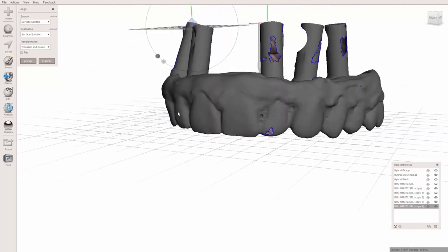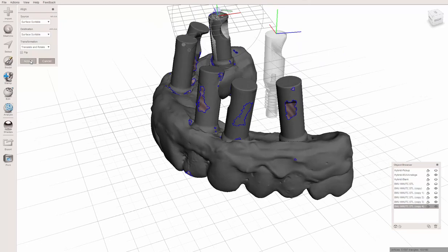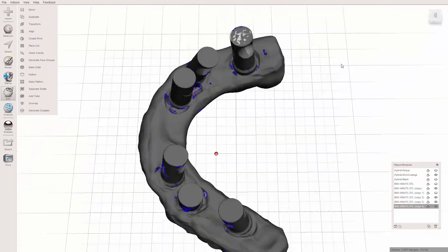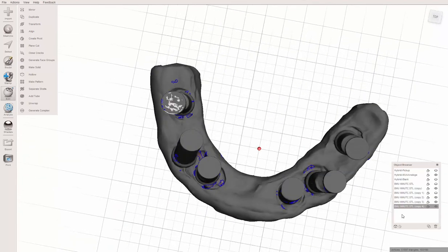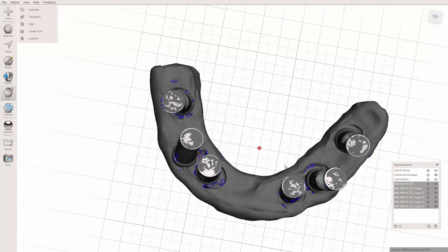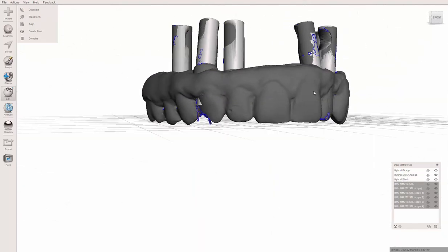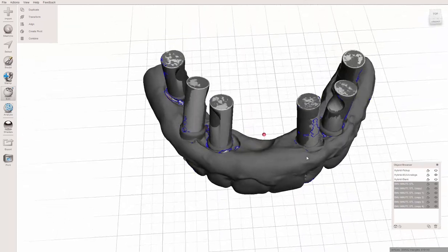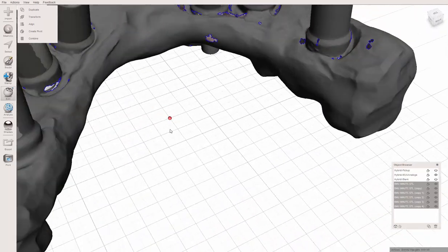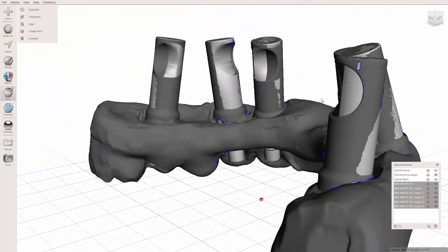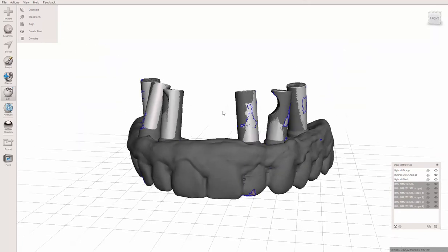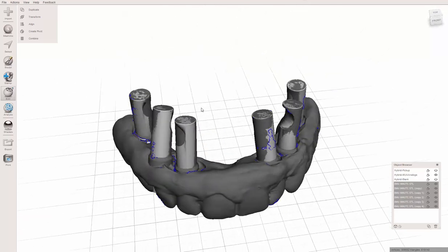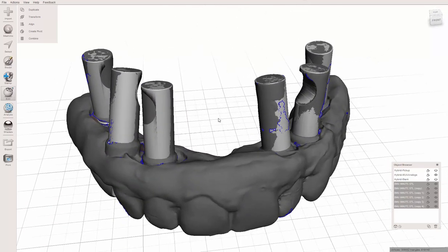One thing to keep in mind is the rotation is not lined up. That might seem weird if you don't think about it, the fact that these are multi-unit abutments. Technically the rotation is irrelevant, we're not worried about that. These aren't perfect alignments, they're pretty close but not perfect. I wouldn't trust this quite yet for a millable situation or even printing. This is going to require some wiggle room to get this perfectly lined up.